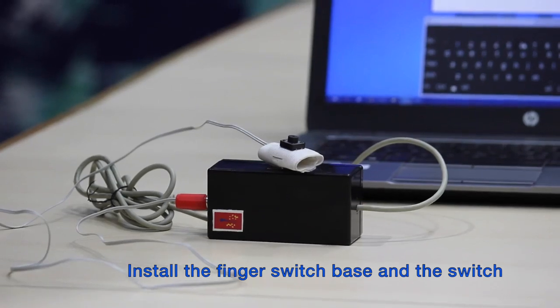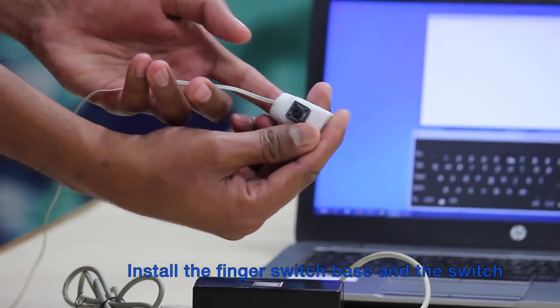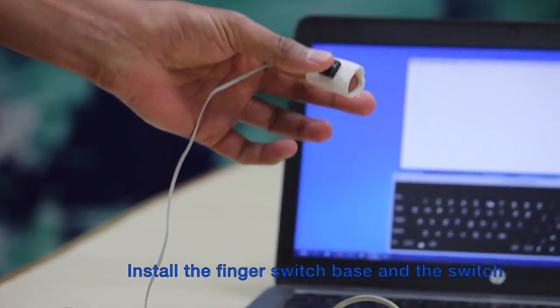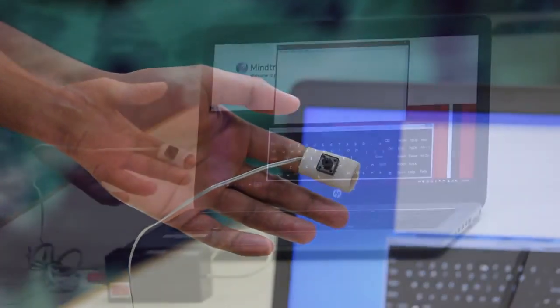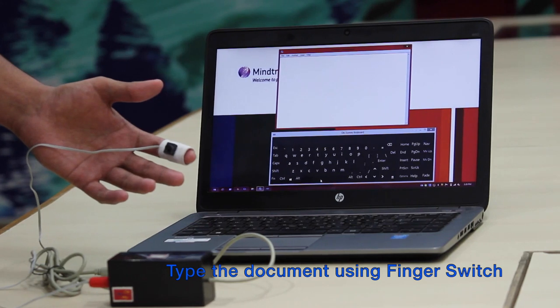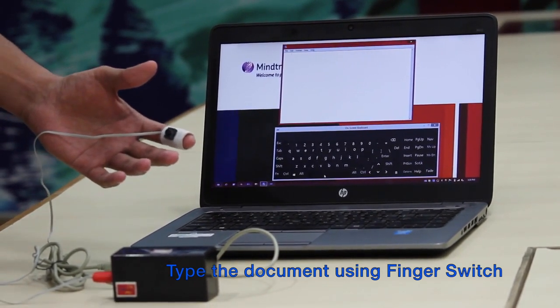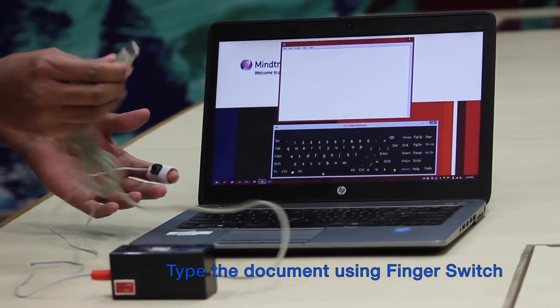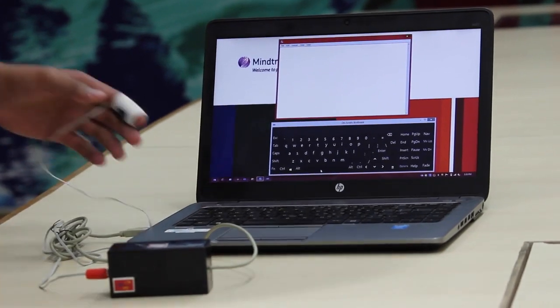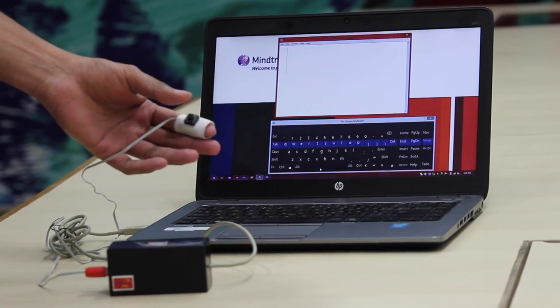This is a variant of Aditi where only the switch can be inserted between two fingers. Now, let us see how the user can type a document using just two fingers alone if he is a bedridden patient. Connect the switch base to the USB port of the laptop and insert the finger switch to the hand. Press the finger switch to type the word fingers.